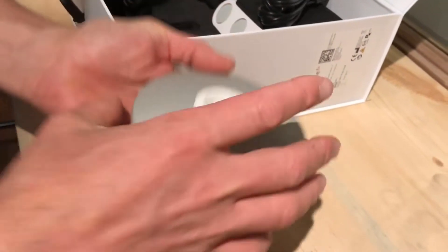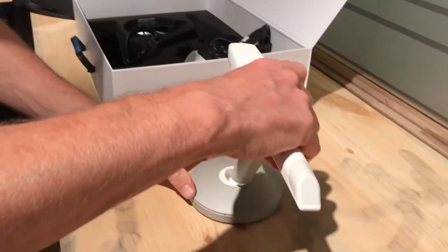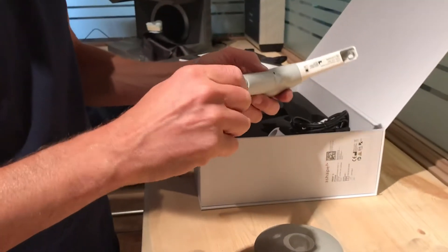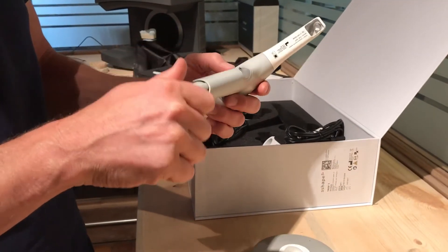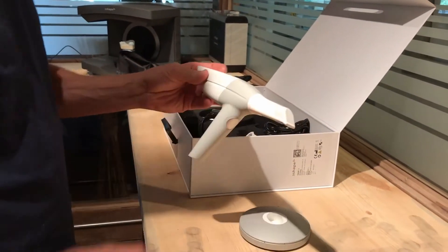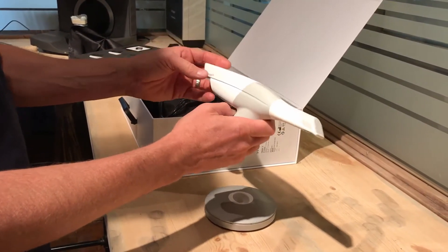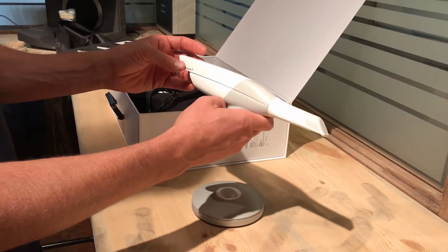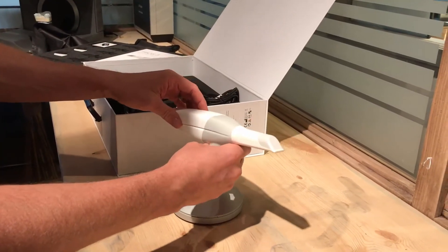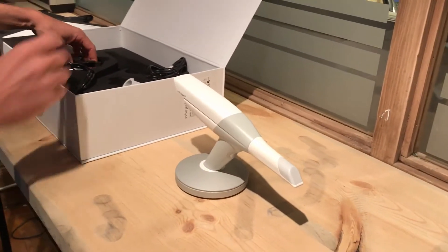This is the wand. We're going to set that in the base and put a battery pack in it quickly. The weight of this wand due to the battery is just a tiny bit more — I think the regular wired wand is about 300 to 350 grams. You're probably looking at about 500 to 600 grams with the battery in the fully wireless pistol-grip wand. The pen grip might be a little bit lighter.